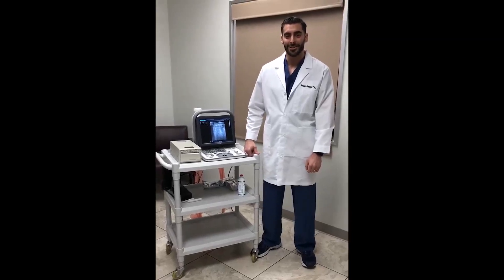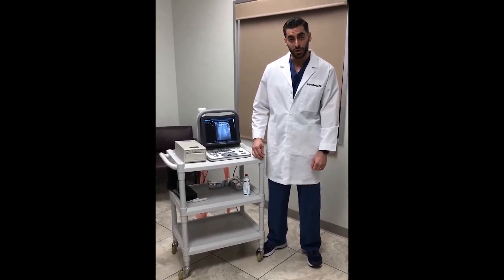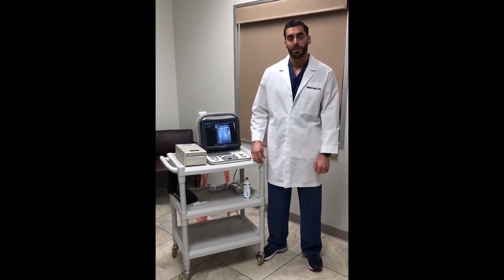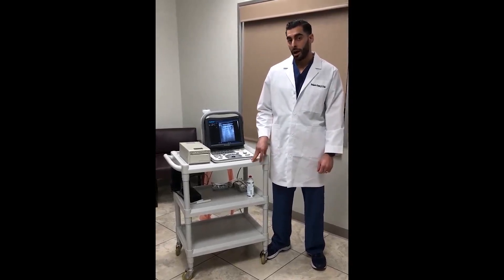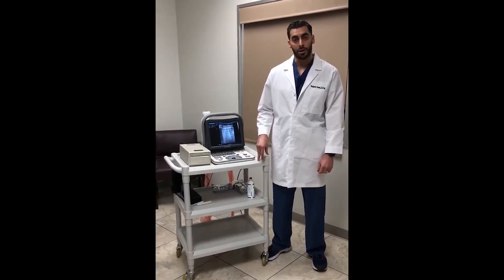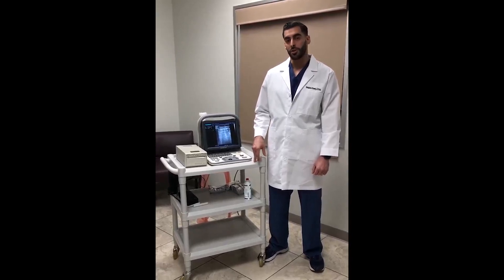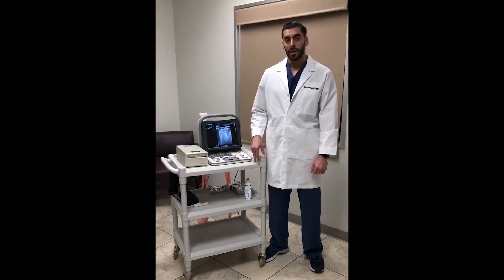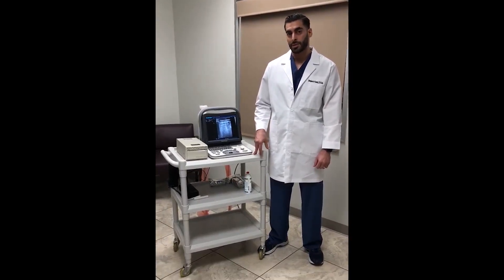Hey guys, Dr. Kamal again here to continue on our ultrasound series. The next pathology or anatomical structure we are going to talk about today is a neuroma. Oftentimes in the clinic it can be an easy clinical diagnosis, but there may be difficulty with injections being guided into the right spot, and an ultrasound is helpful in identifying a neuroma and ensuring your injection is placed properly. There are also other pathologies that may present in the intradigital or intermetatarsal space that may give similar symptoms, and today I'll talk about how to identify a neuroma, the intermetatarsal spaces, and any other pathology.